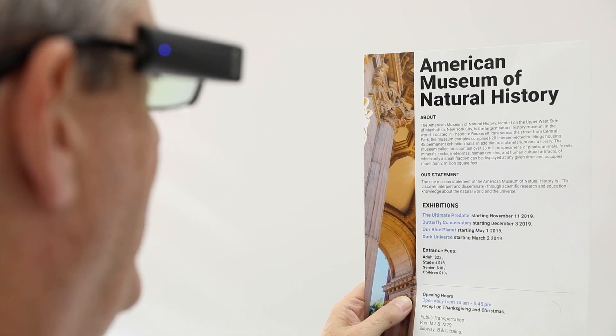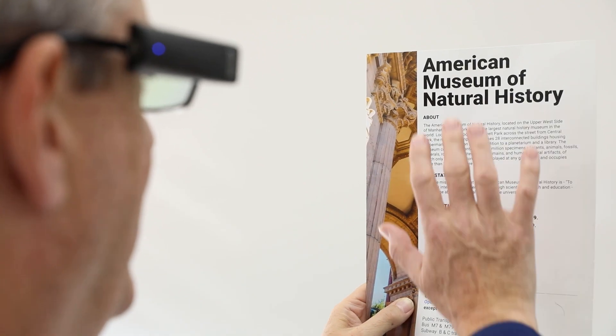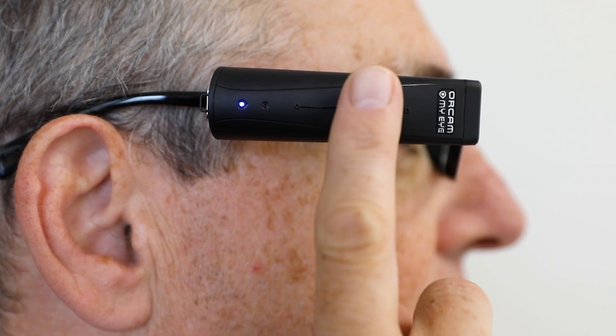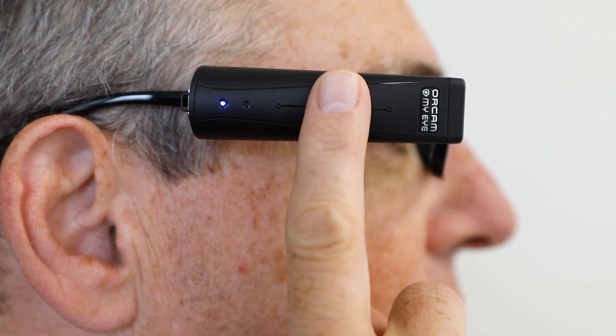To exit interactive reading, say Exit. The device responds: Exiting. You can also use the stop gesture or press the touch bar for five seconds.